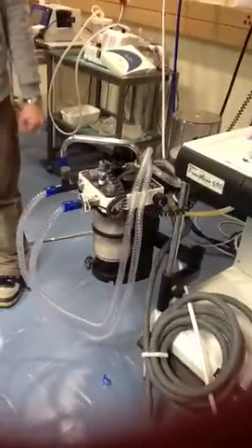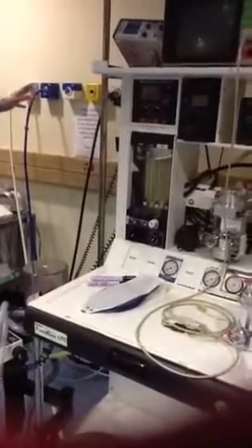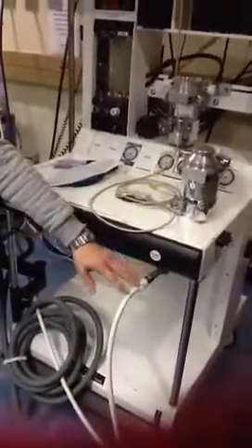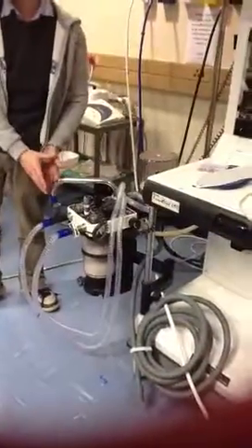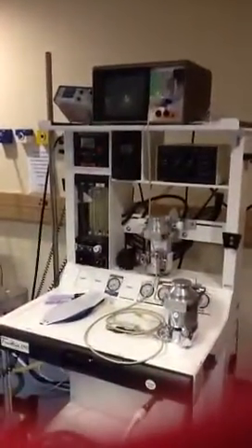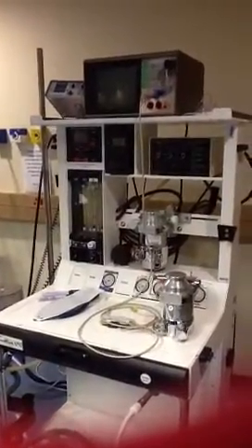When we test it, we want to test the high pressure side, that we are able to mix the gases that we want to give to the patient. Then we want to test the low pressure system, which is the side that we're going to connect the patient to. Then we want to test all our monitors to make sure that we're monitoring the patient sufficiently. So let's start with the high pressure system.